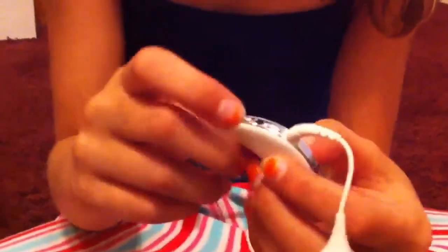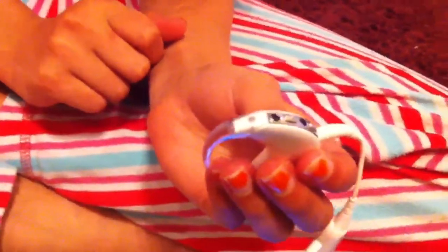Sometimes it refreshes. This is how you turn it on — you hold it for three seconds. If there are two beats, that means I'm on channel two.